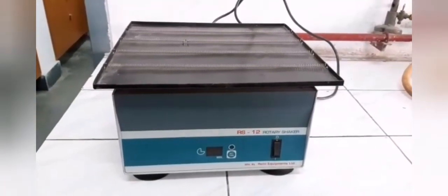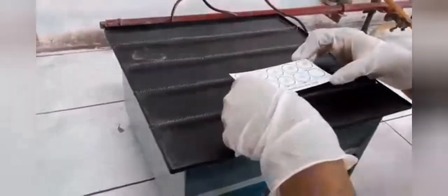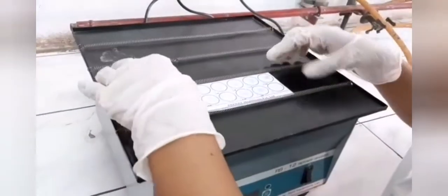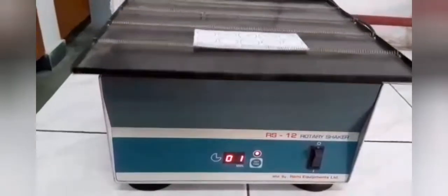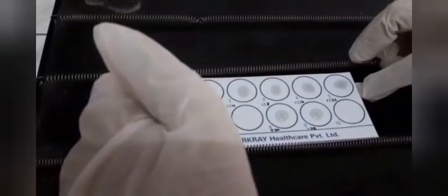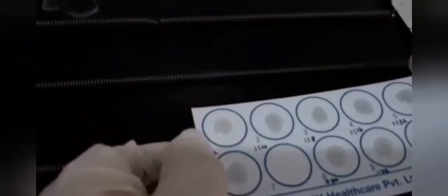This is a VDRL shaker, which is used for mixing the syphilis card. Carefully place the VDRL card onto the shaker, then turn it on and set it for 8 minutes. Let the card agitate for the full 8 minutes on the VDRL shaker.